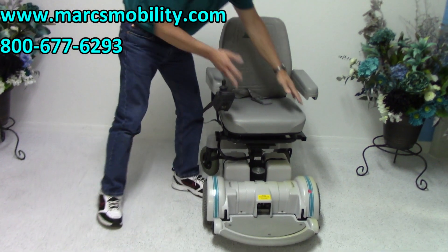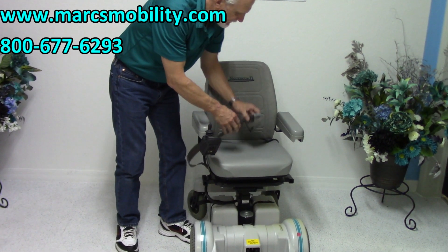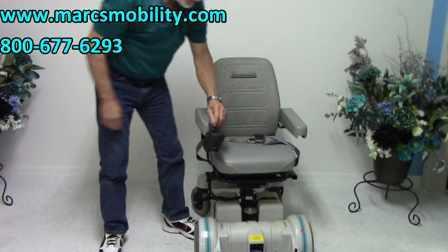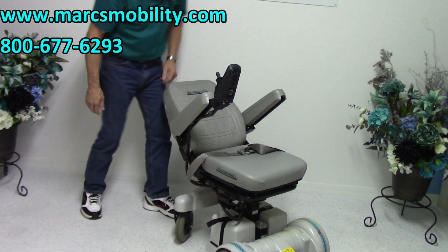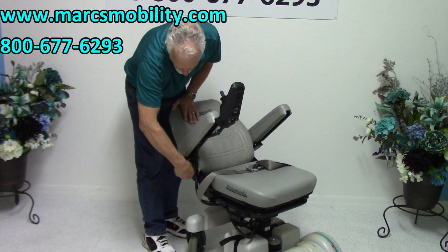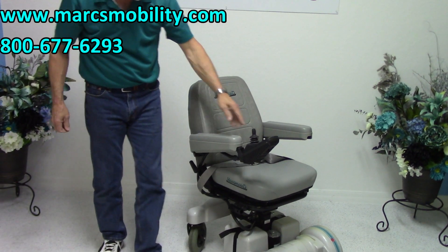This has a 17 by 17 deluxe cushion — very comfortable cushion. Safety belt is also on this chair. This is a captain's seat; the seat can be adjusted all the way up. If you're going to recline, you can go all the way back, or you can fold the seat down. Most people will drive at about this position here.